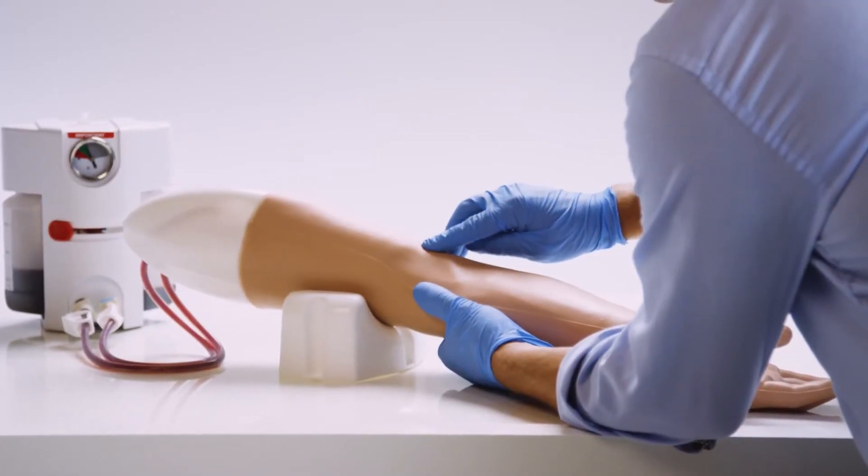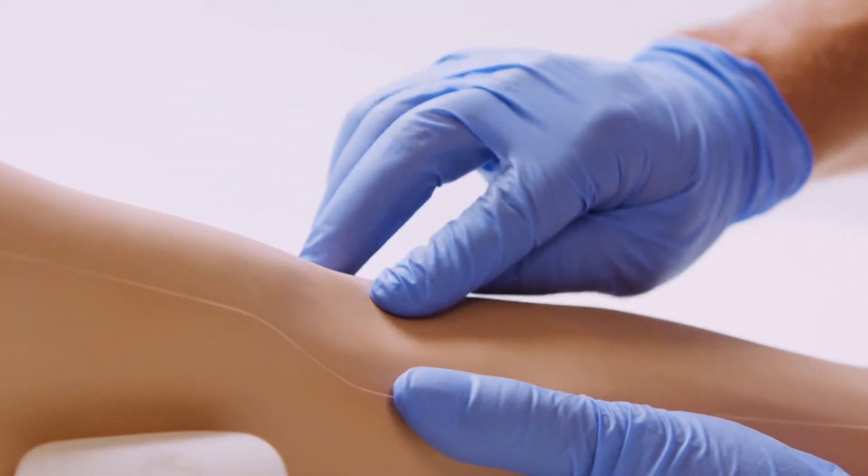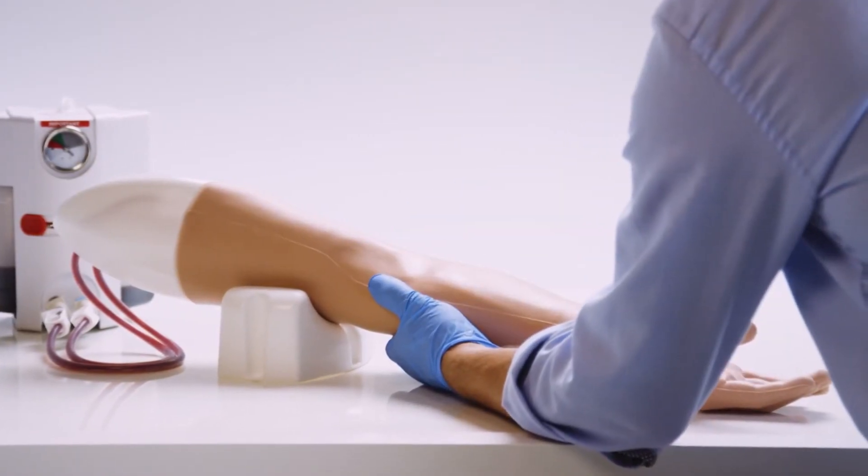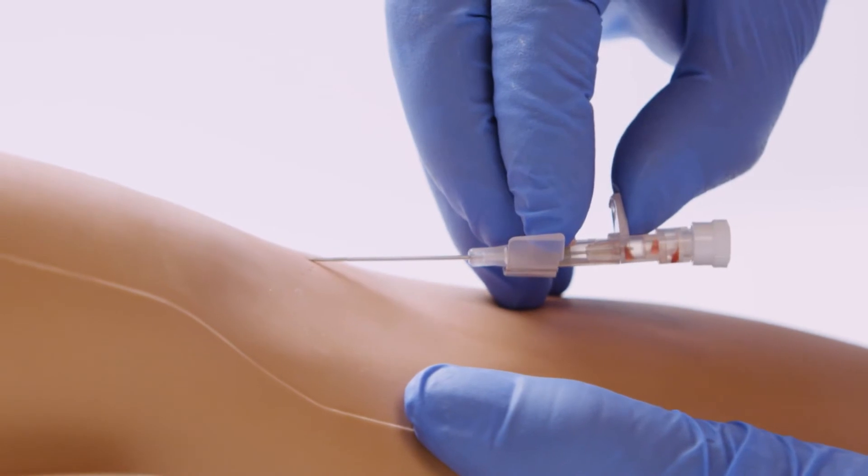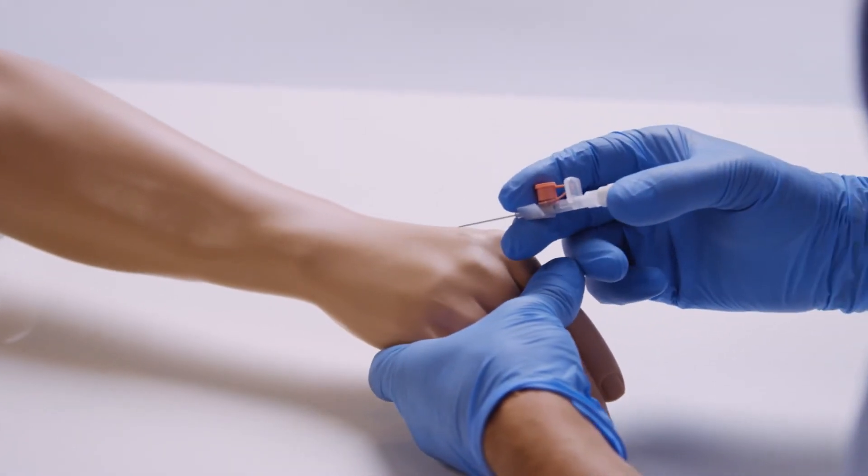The initial two stages of visual inspection and palpation can be practiced. Once the vein is located and the needle inserted, a realistic blood flashback is produced from the pressurized fluid system, incorporating digital pressure to stem blood flow.